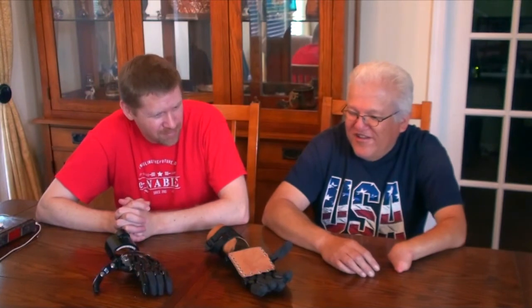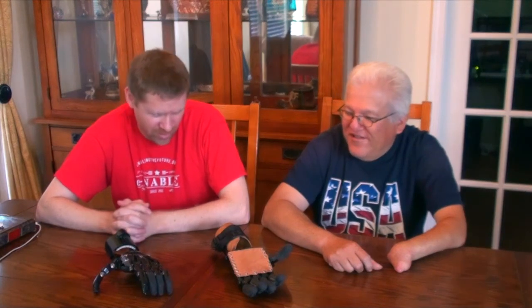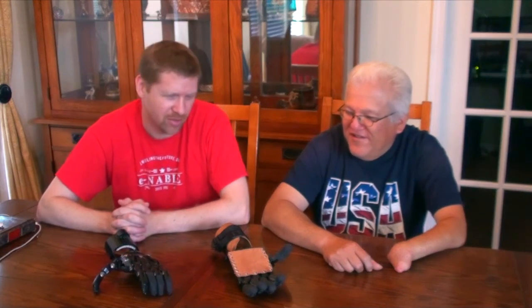Any other suggestions for the design? No, other than listen to the phone. And I like these rubber gloves on the fingers. Yeah, those are nice — that was a suggestion from Peter Binkley. I'll share the link to those gloves in the video. Well, Jose, I really appreciate you coming over today. We'll get you that Allen wrench and make some adjustments on the Osprey Hand. Thanks everyone for watching. Bye.